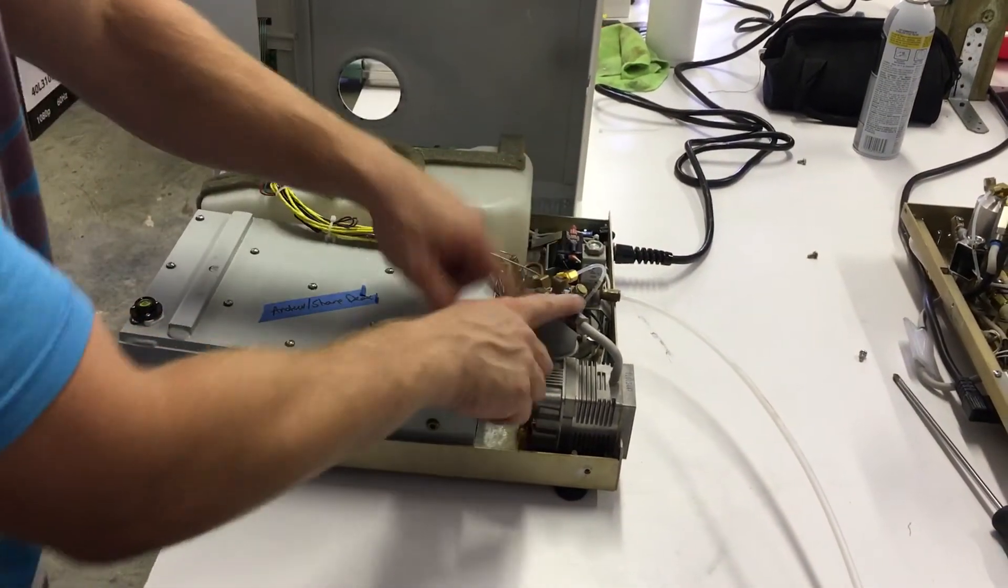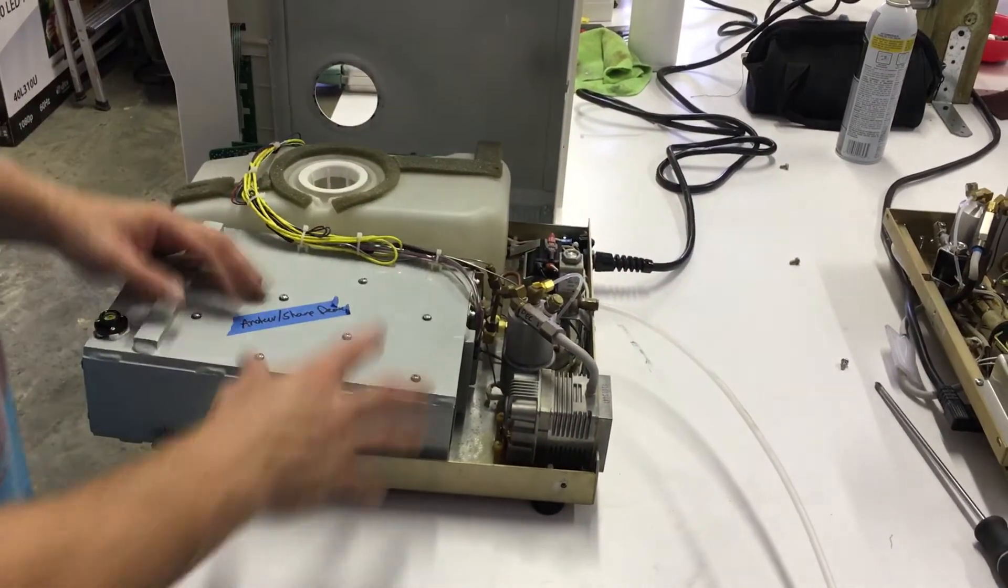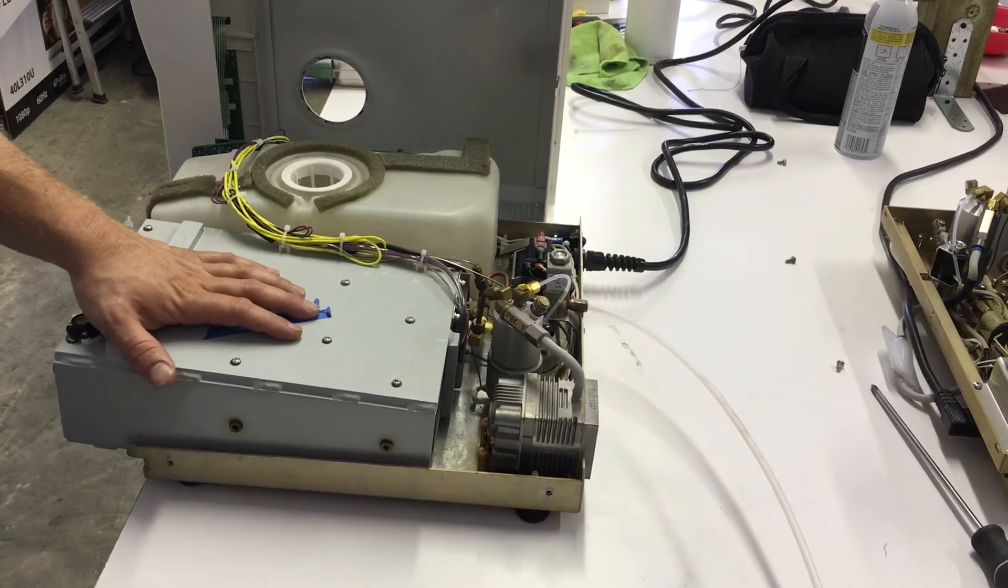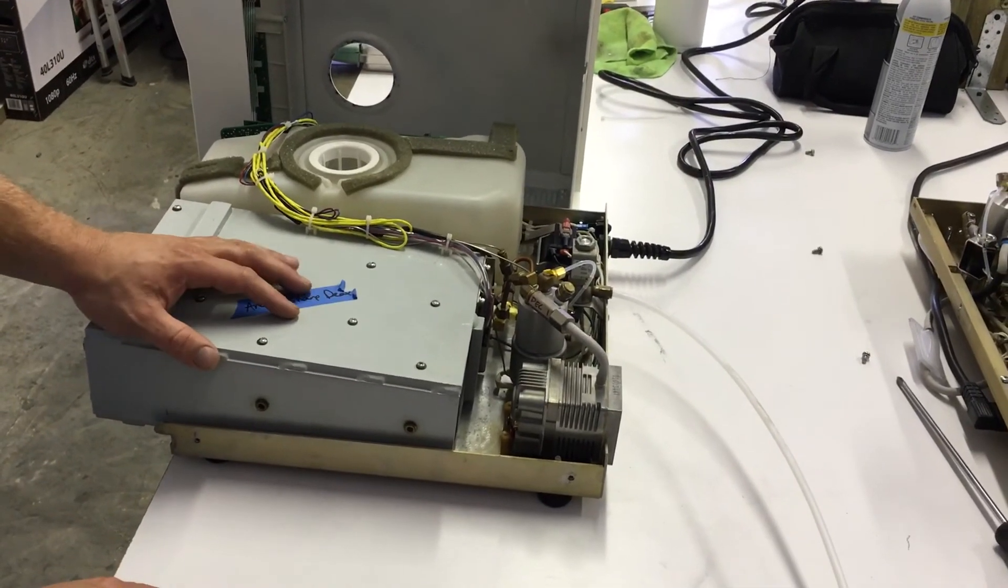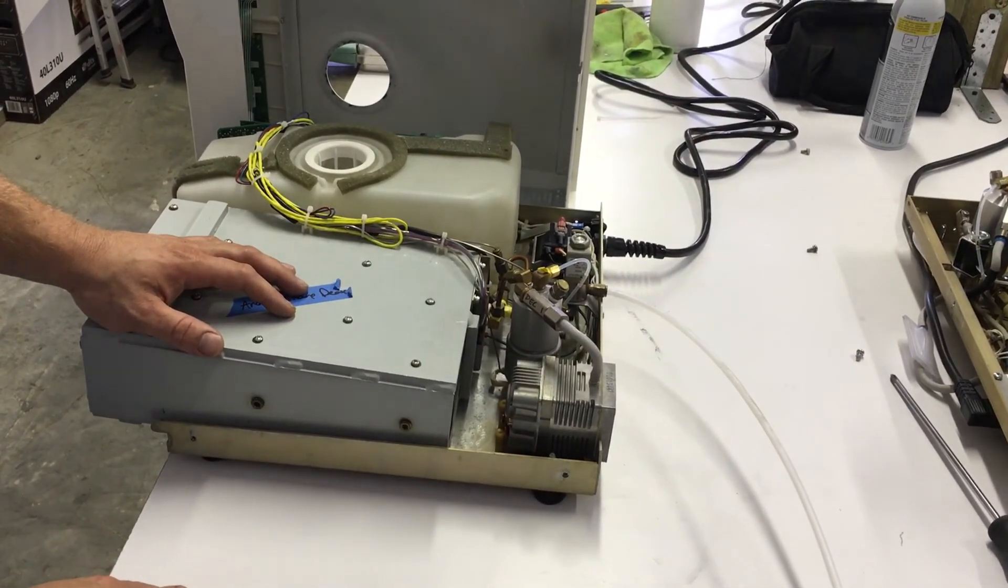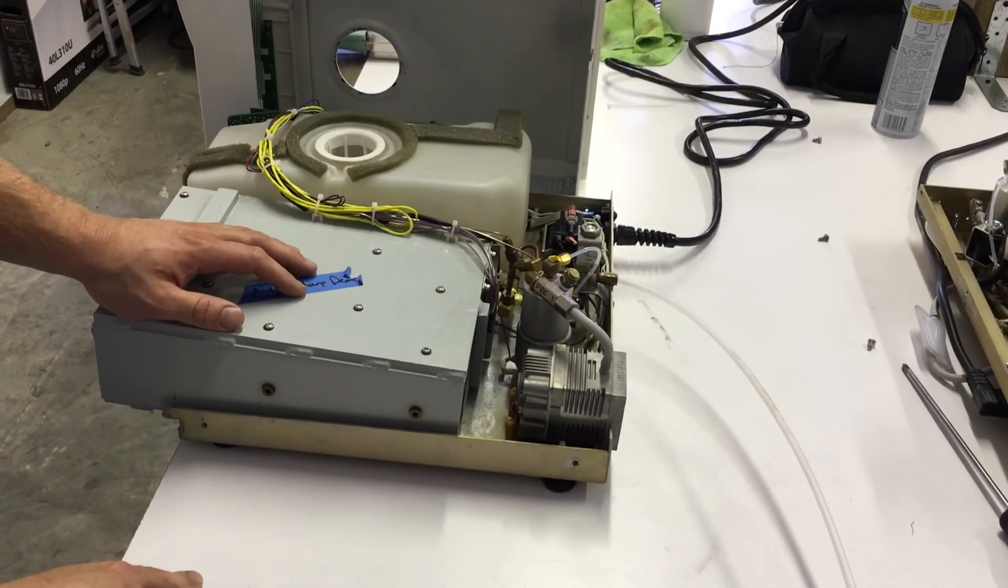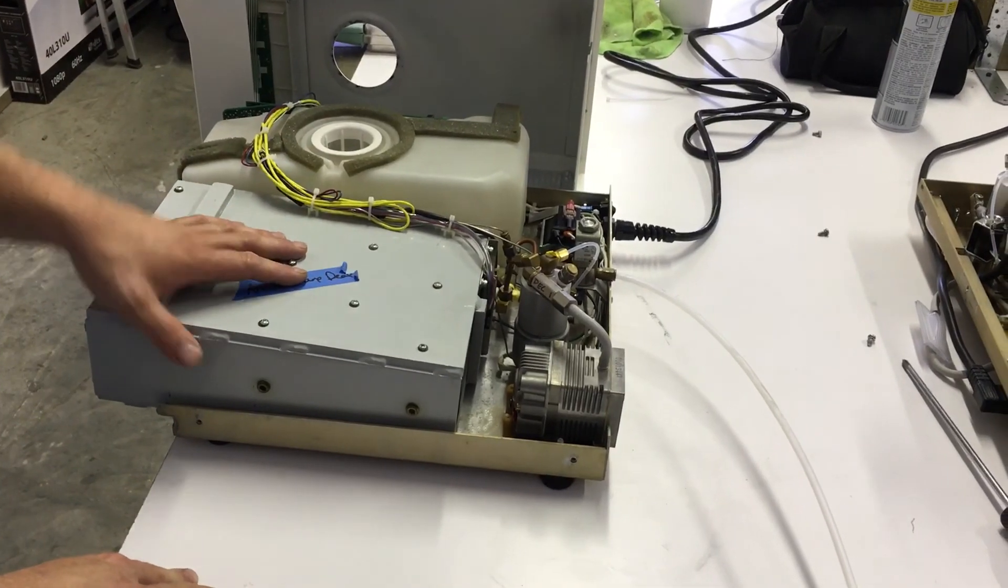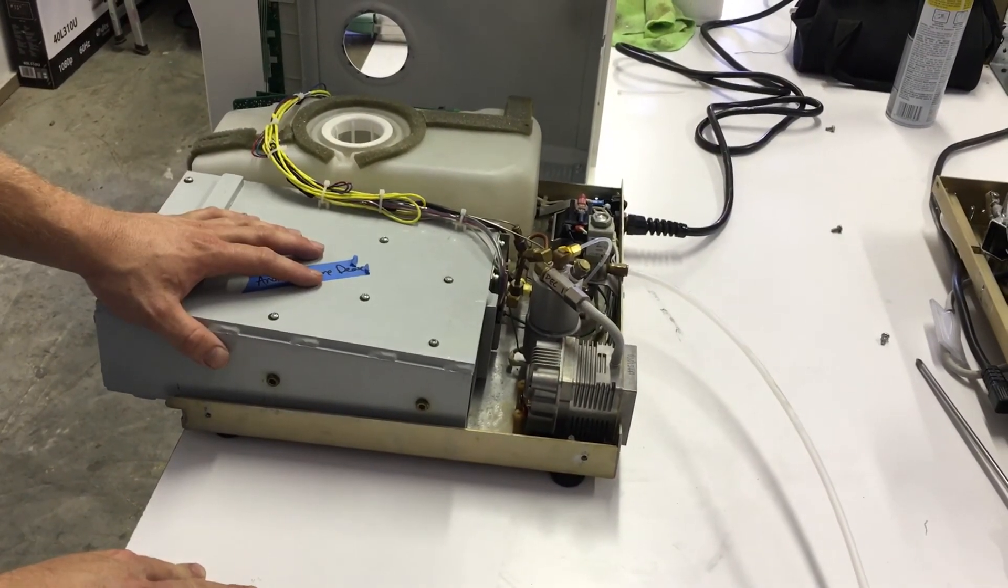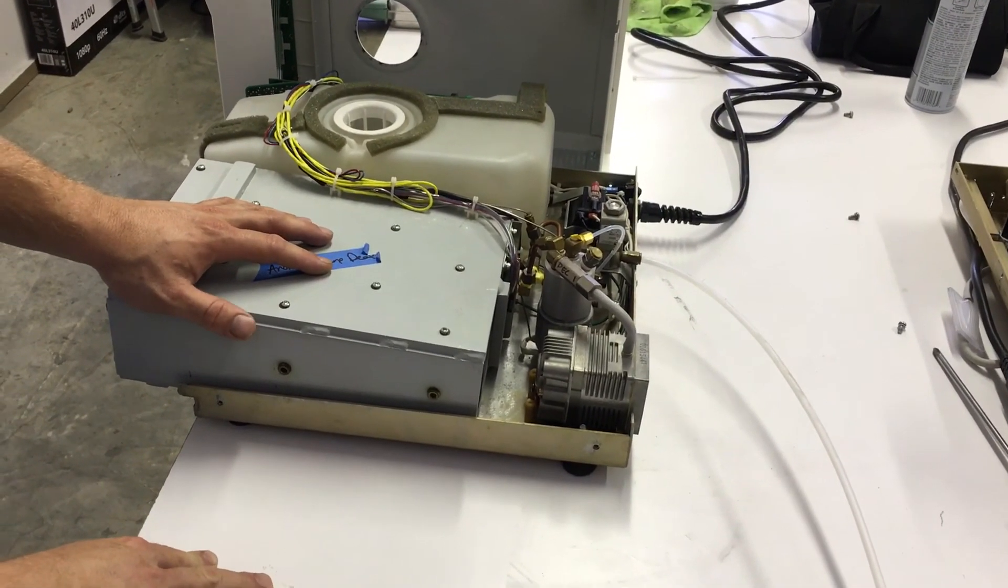Now you can replace the check valve, clean back here, whatever you need to do. Give us a call, 704-910-0341. We can do all this repair for you, or we can talk you through almost any repair on this machine. Have a nice day.